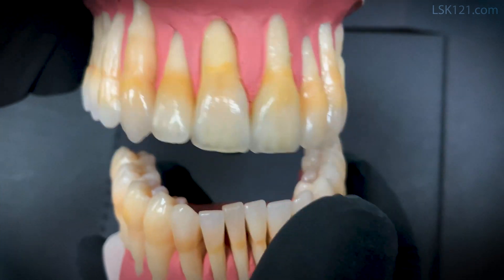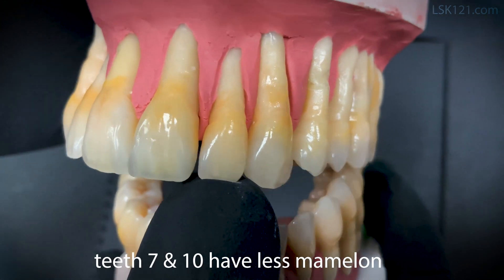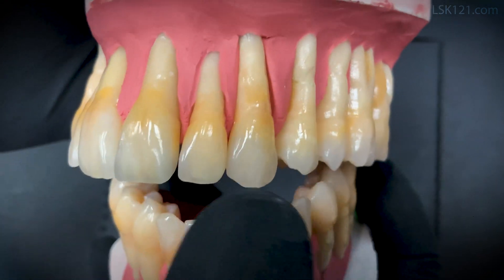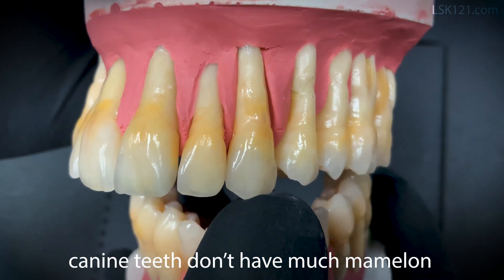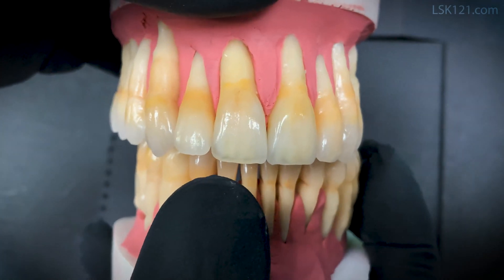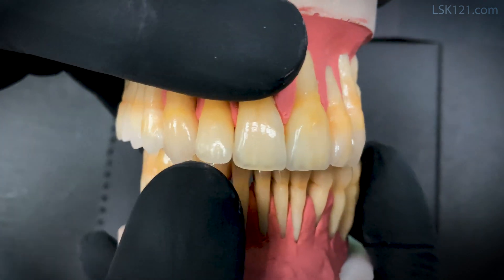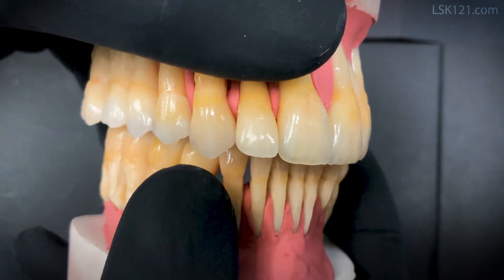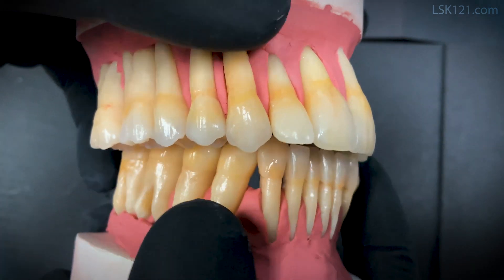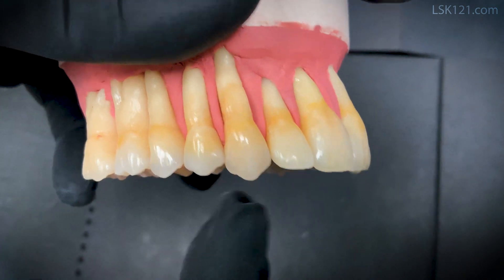Teeth 7 and 10 have less mamelon, which is intentional to make them lighter. The canine has not much mamelon, so this is a natural appearance. People say A1 and B1 don't work, but this is the natural aspect of my layering from the initial porcelain from the root to the top.